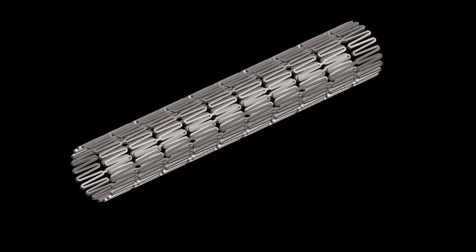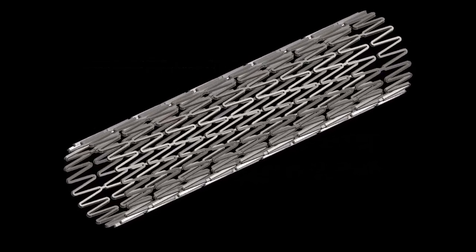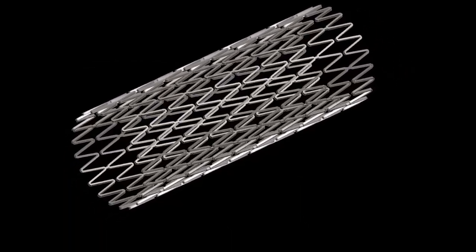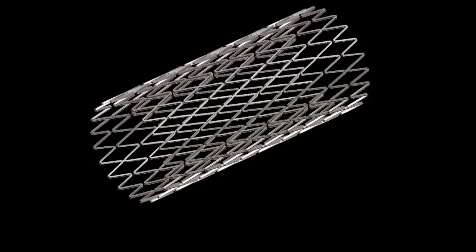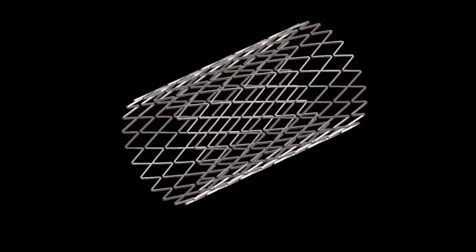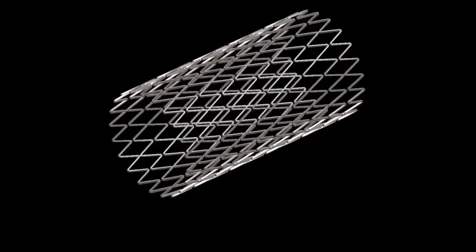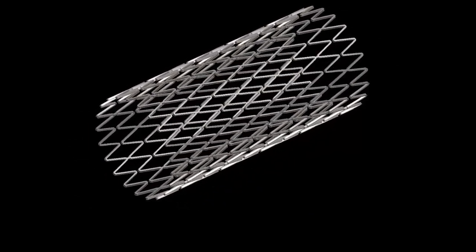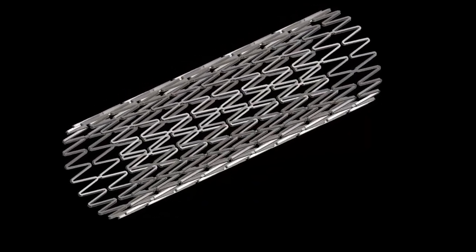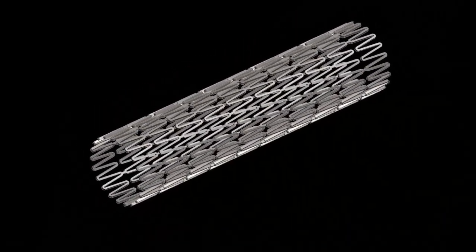The geometry shown here is for a generic, cylindrical, self-expanding metal stent. This video shows how to create a CAD model of this stent in just a few relatively simple steps using Pro Engineer's toroidal bend feature. The method is directly applicable to other geometries.